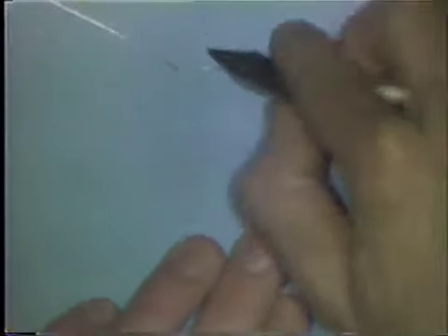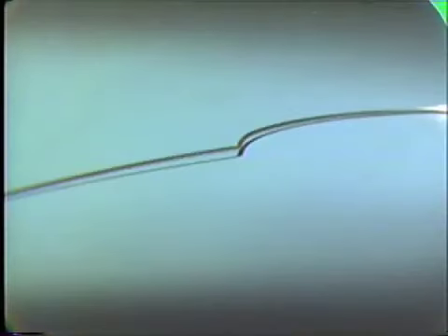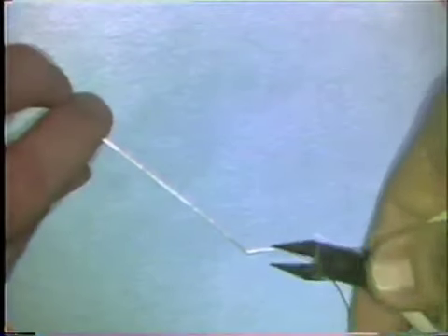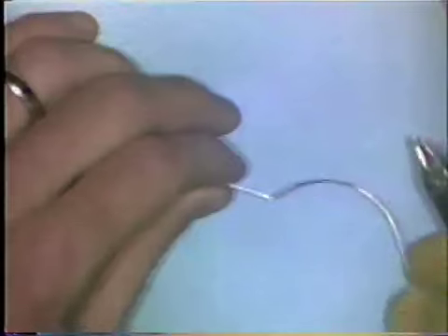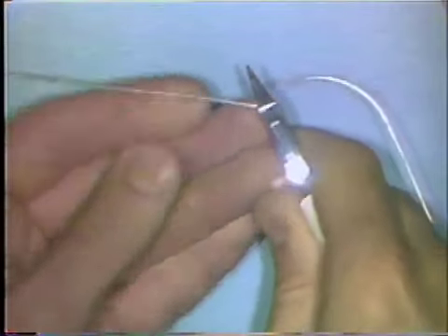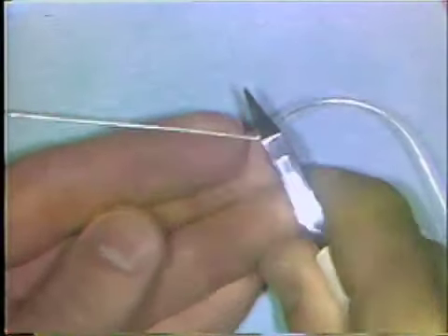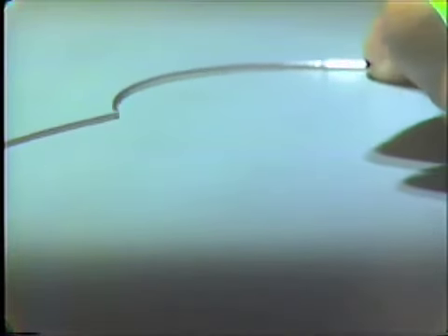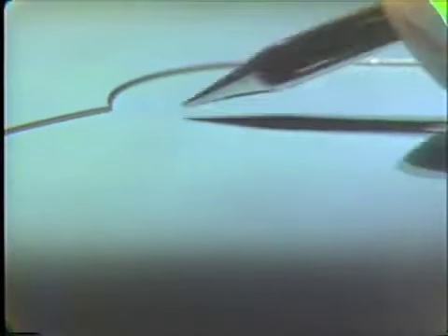You know that your curvature was flat before, and it leaves the table now at the point where you placed the last bend. This means that the lack of adaptation to the tabletop is due to this last bend that you've placed in. To correct this, you place the wire in the beaks of the plier and make a slight upward bend, and try it again on the table surface. Sometimes more than one upward or downward bend is needed to adapt it to the table surface, but now this leg of wire is in the same plane of space as the curvature.